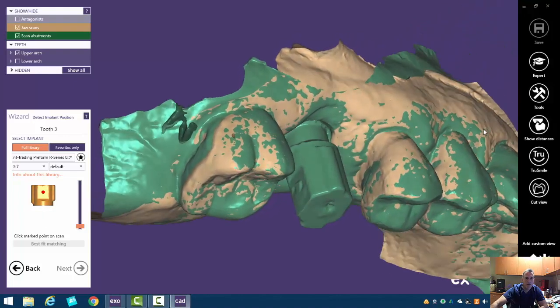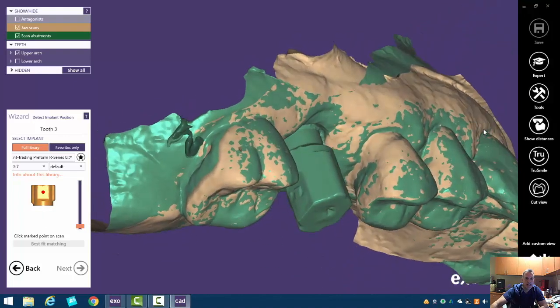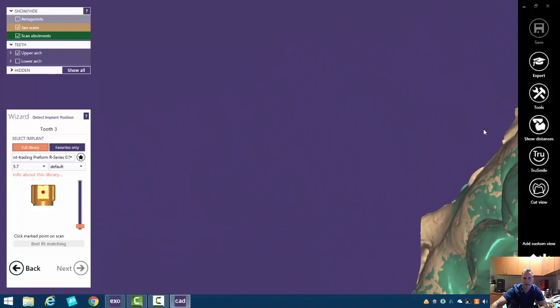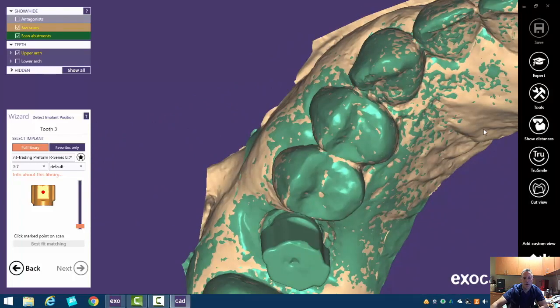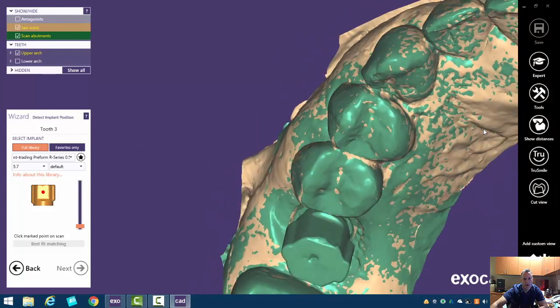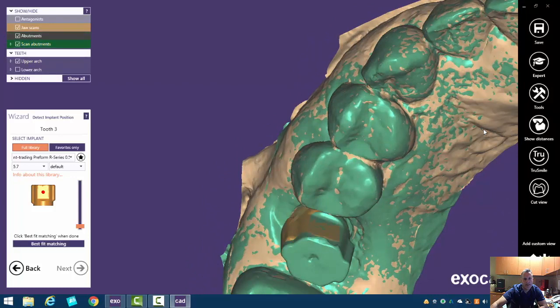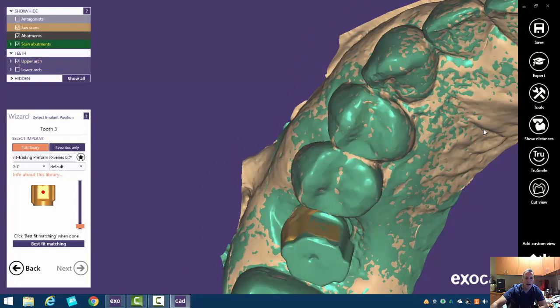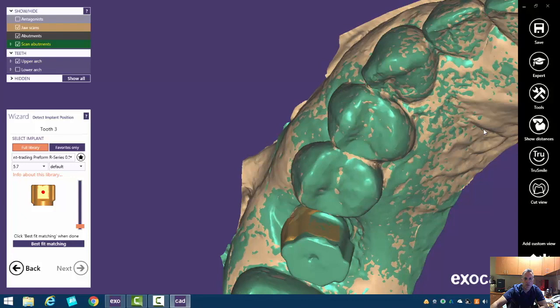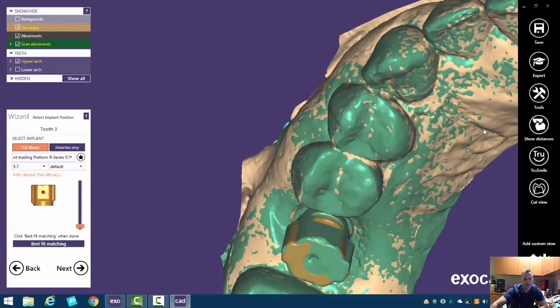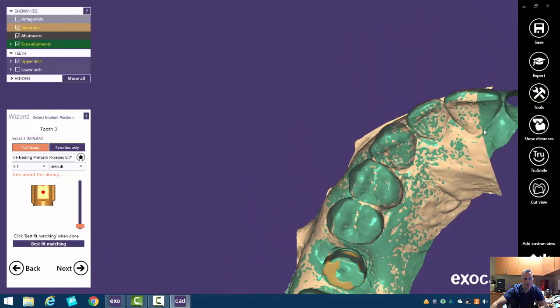And so now it's going to ask us to go ahead and tell us where this is. So we have a fat part and a skinny part. I'm going to click on this and see if things lined up. It kind of gets you to a roundabout sort of way. And if I hit best fit matching, it tries to do it on its own.